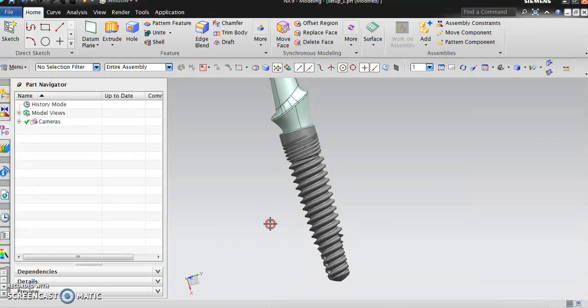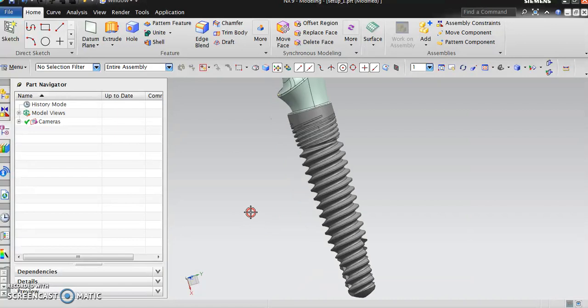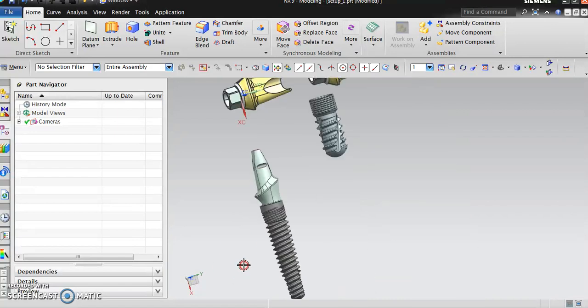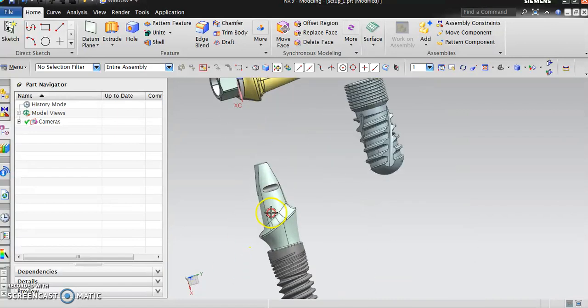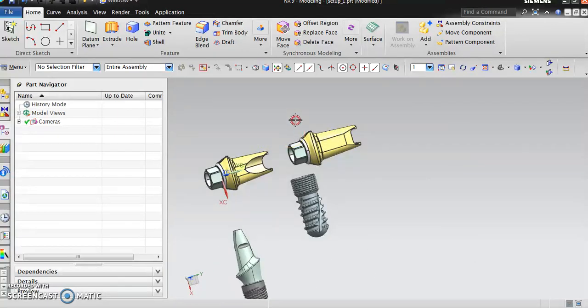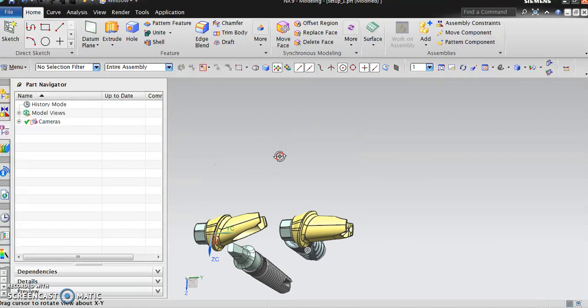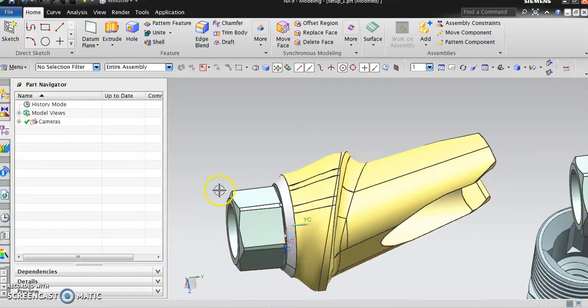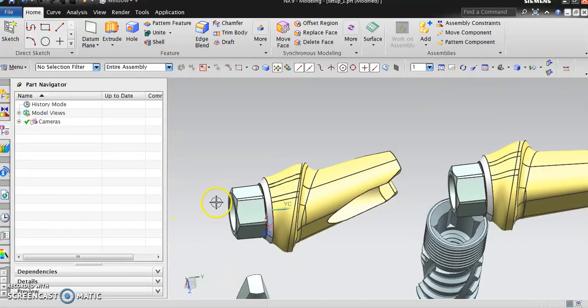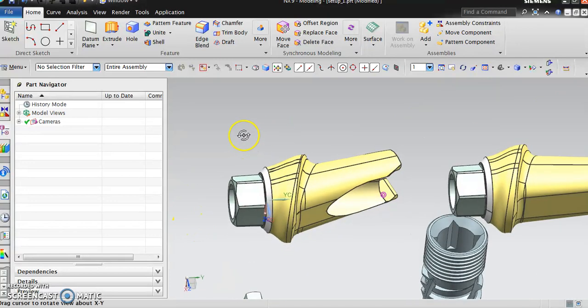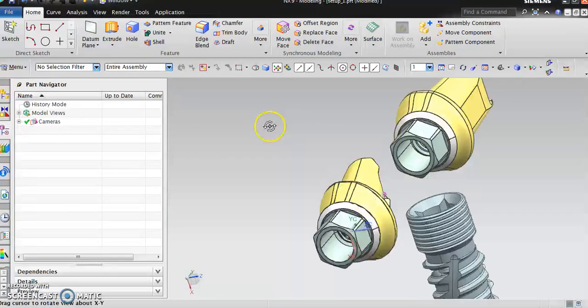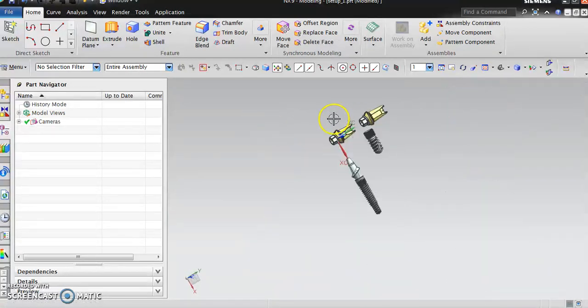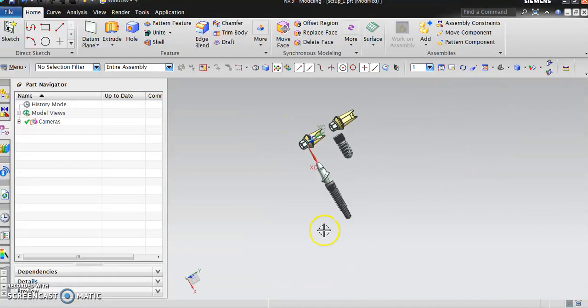You can see the abutment here. Since you can see that it has both milling and turning features, it's best to use a screw machine type. For this product, it's all made from a bar stock. A single bar stock can make all those things.